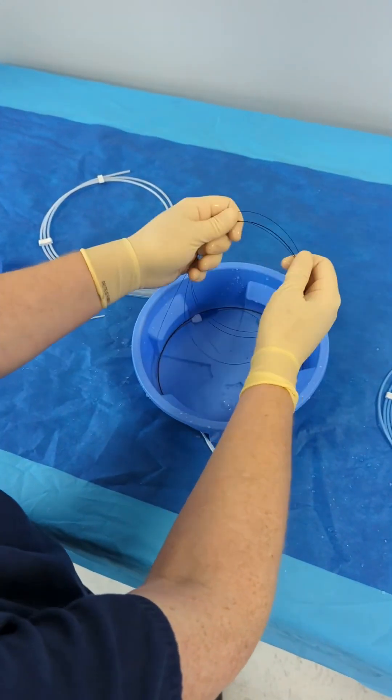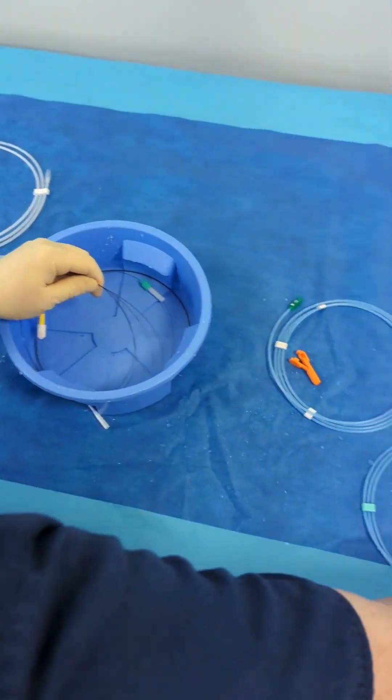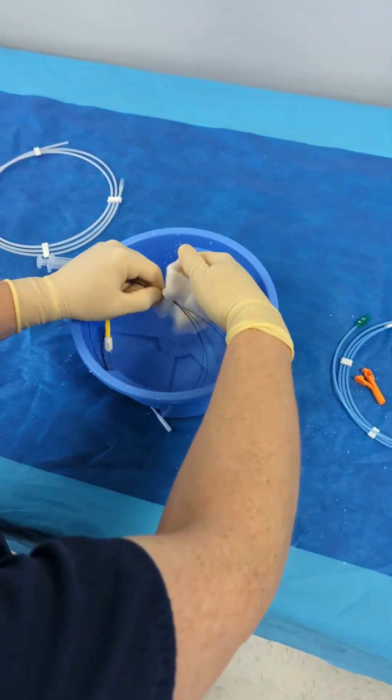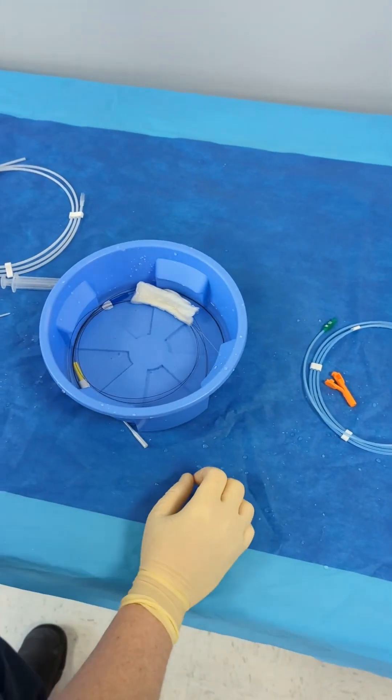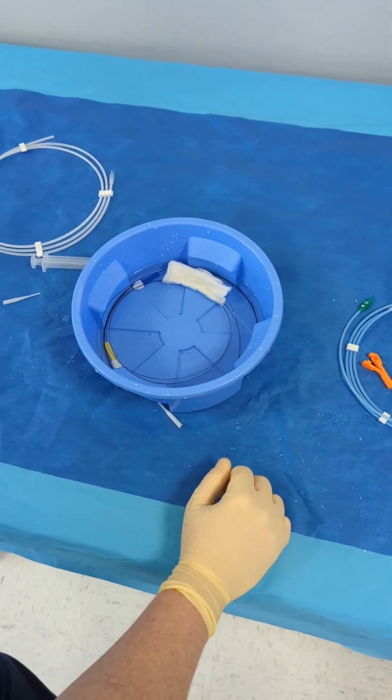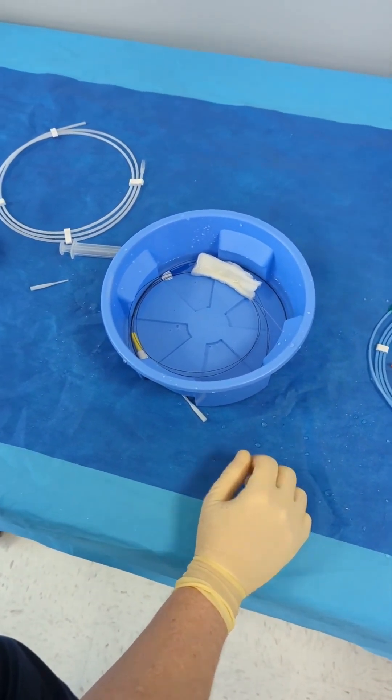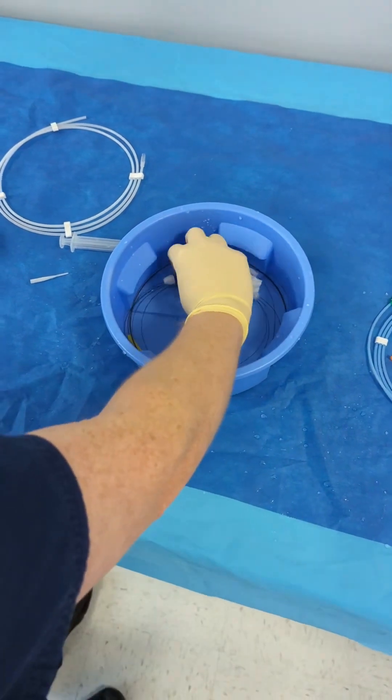If I was having trouble or these things got sticky, I can always take a piece of gauze like this and wet it and fold it around and wrap it in the wire.